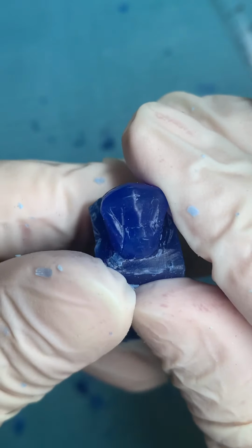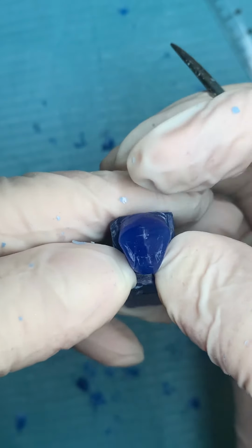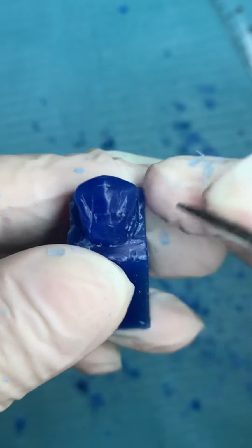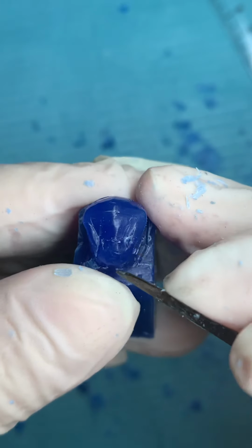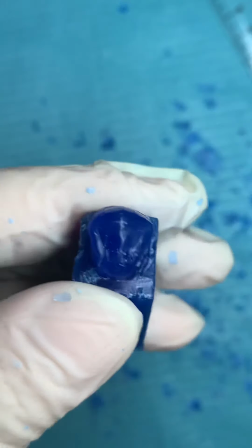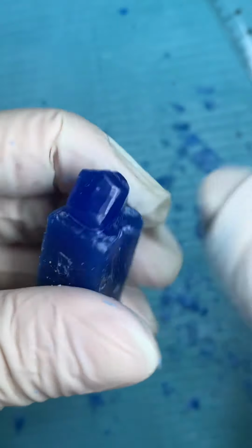Now I have my diamond shape, right? Occlusal outline, diamond, buccolingually greater than mesiodistally. I have what? Severe lingual convergency, central groove shifted lingually, two marginal ridges. After that I have inside two fossae. Okay. Try to make some polishing.